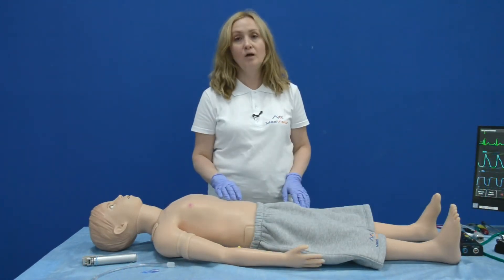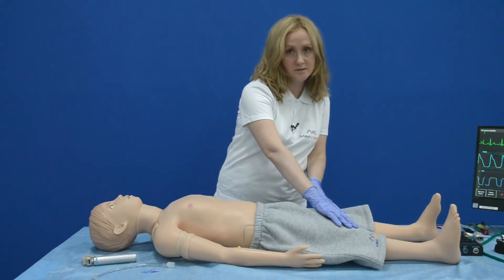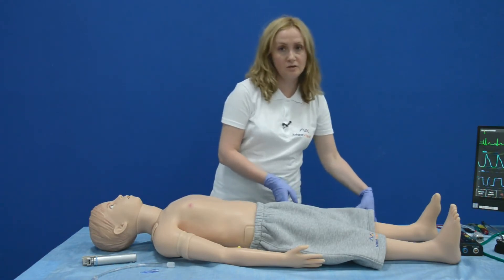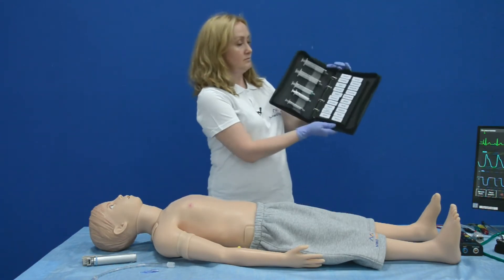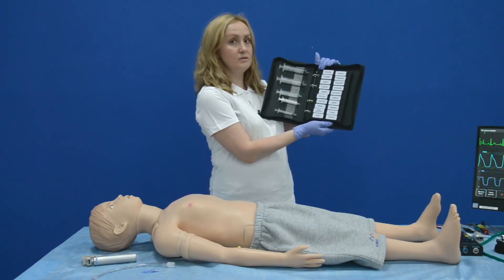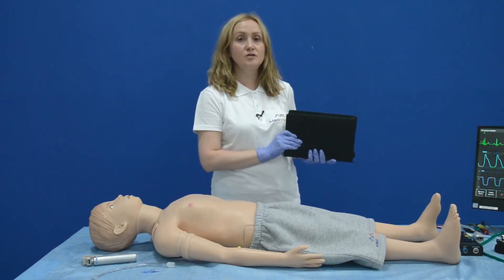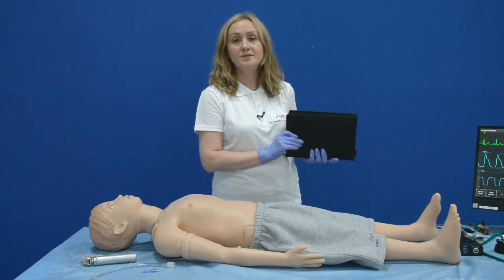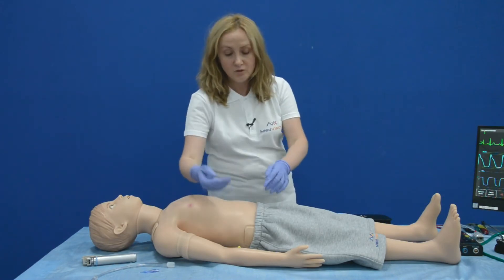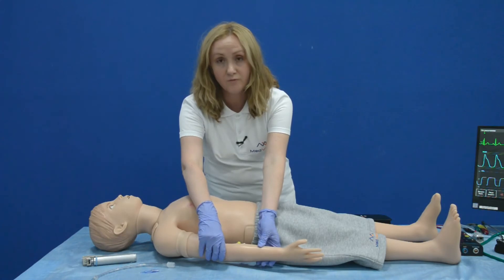Arthur is equipped with an IV access port and bilateral IO access port system. To perform IV drug administration, there is a set of syringes of various volumes and a wide library of RFID tags to be attached to a syringe. The rate and volume of the drug you have chosen can be set in the software, and the access point is found on the anterior region of the right forearm.